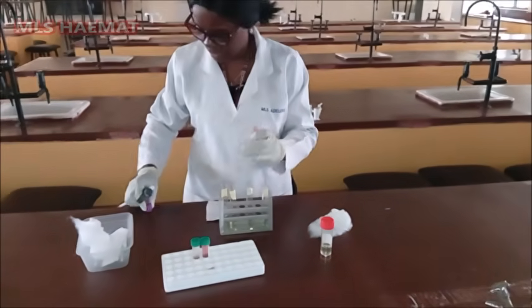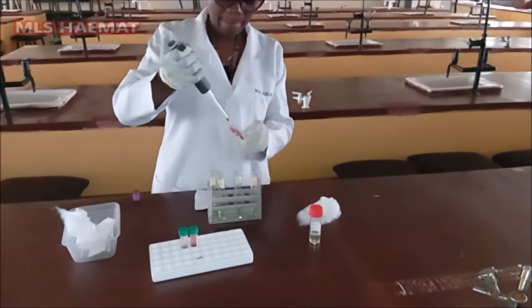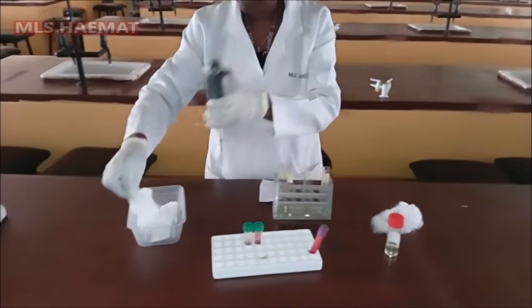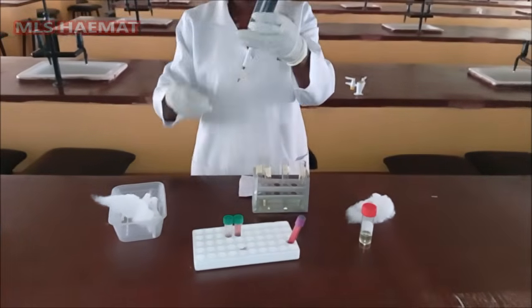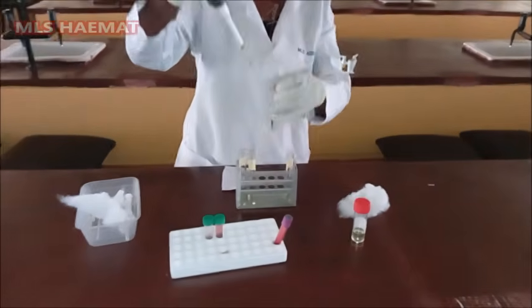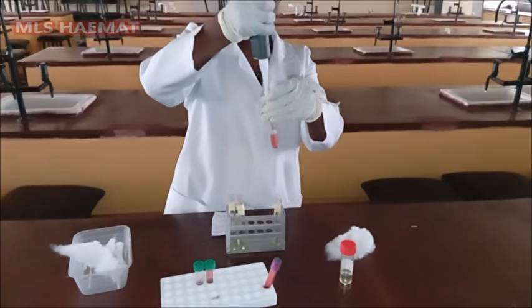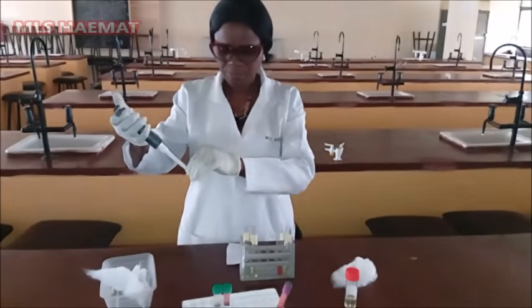So I'll add it to the Drabkin solution. Mix it well.